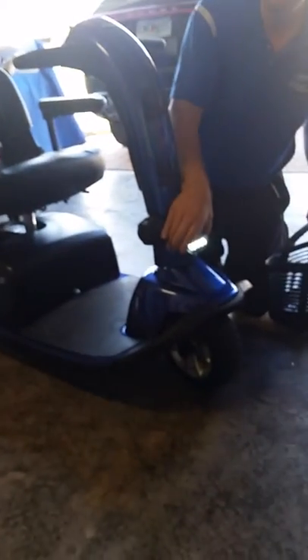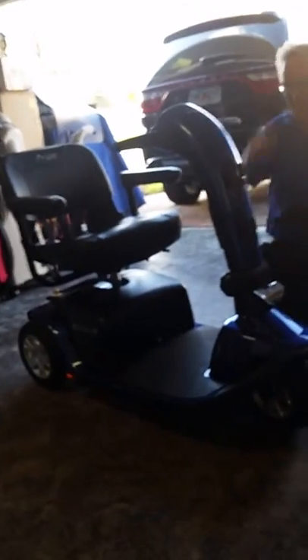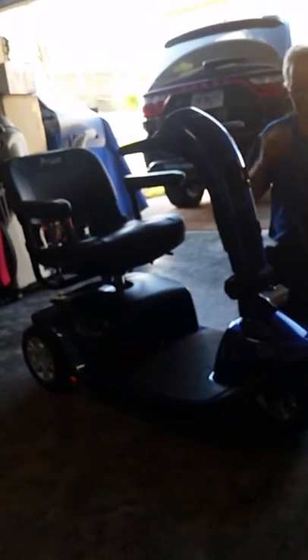He's got his basket to hold if he goes grocery shopping. There's the headlight — I would definitely put a little LED in there. LEDs last forever, you don't have to worry about replacing them.